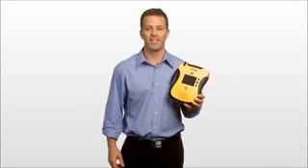Hi, I'm Kevin, and I'm here to show you the new Lifeline View from DefibTech. The company that redefined easy to use just made things easier, and that means an inexperienced user like me can use an AED with confidence to save someone's life.